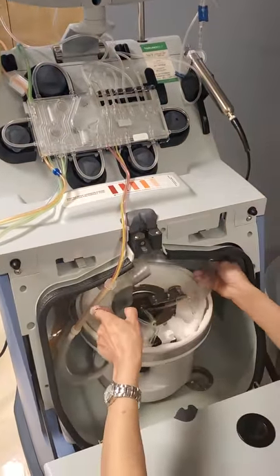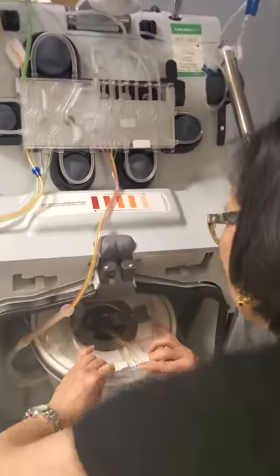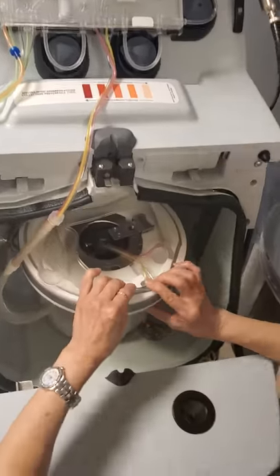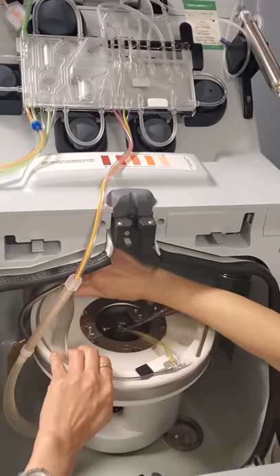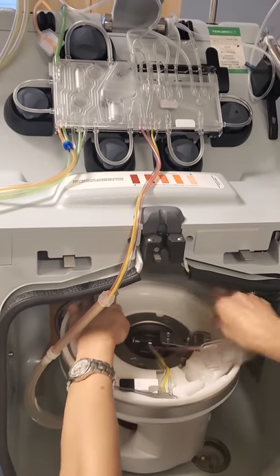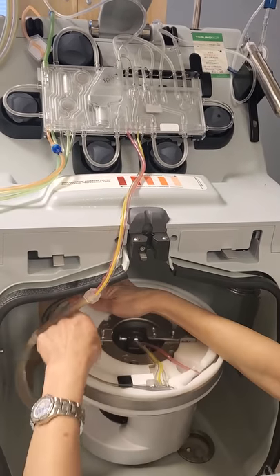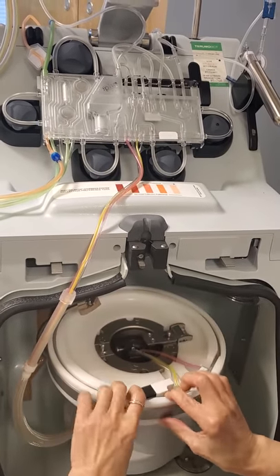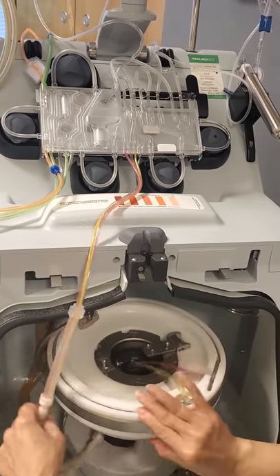I'll do the dip and the flip. Start with the connector, being careful not to touch the inner wall of the connector — that's where AIM is looking. Then you want to make sure that the channel is flush with the filler by pushing down on it all the way around.